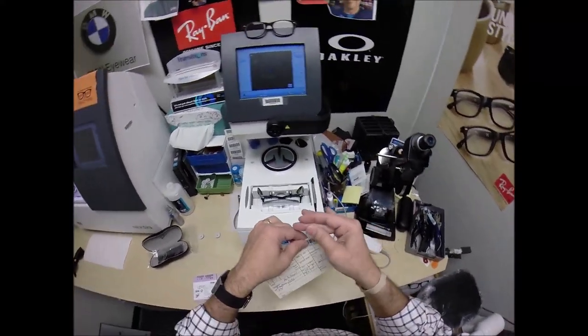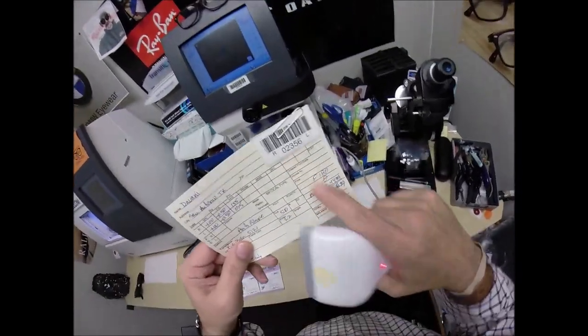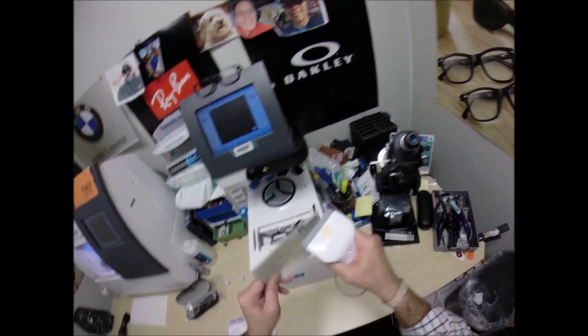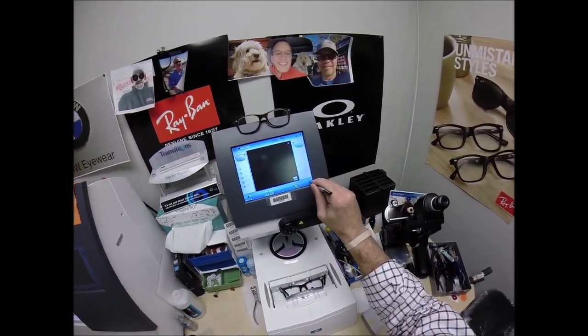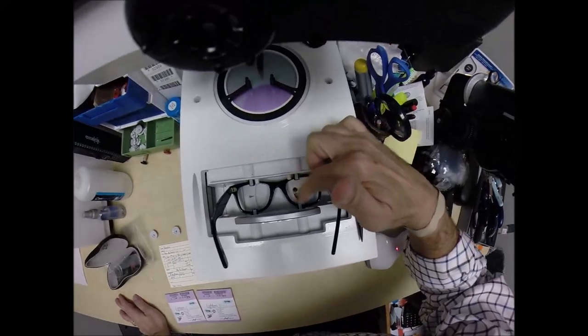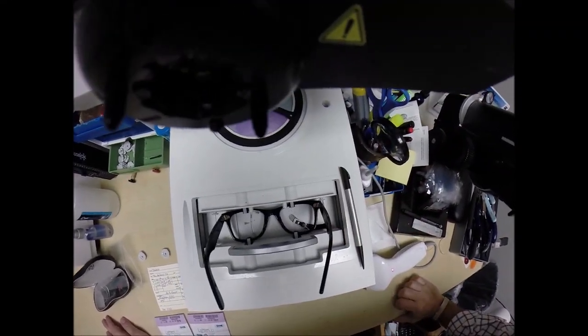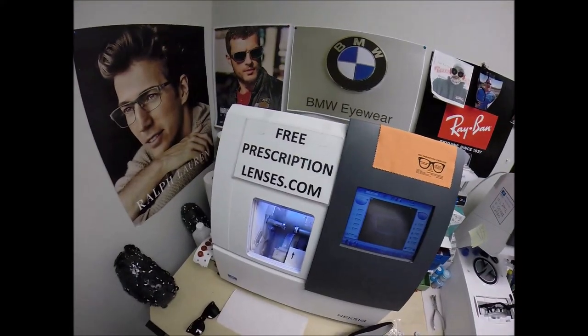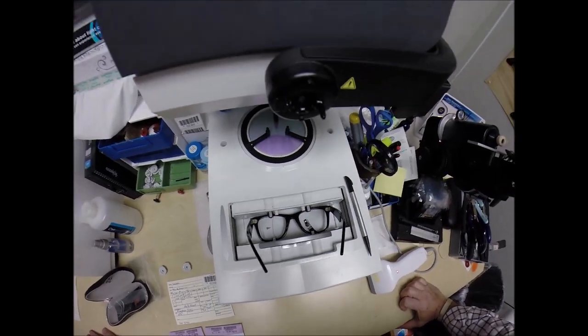You are secret agent 2356. I'm going to put that on there and hit the start button. The little stylus is going to come up and trace the inside bevel of the right side of the frame before doing the same thing on the left. Here at FreePrescriptionLenses.com, where everyone loves a bargain and no one is disappointed in quality.